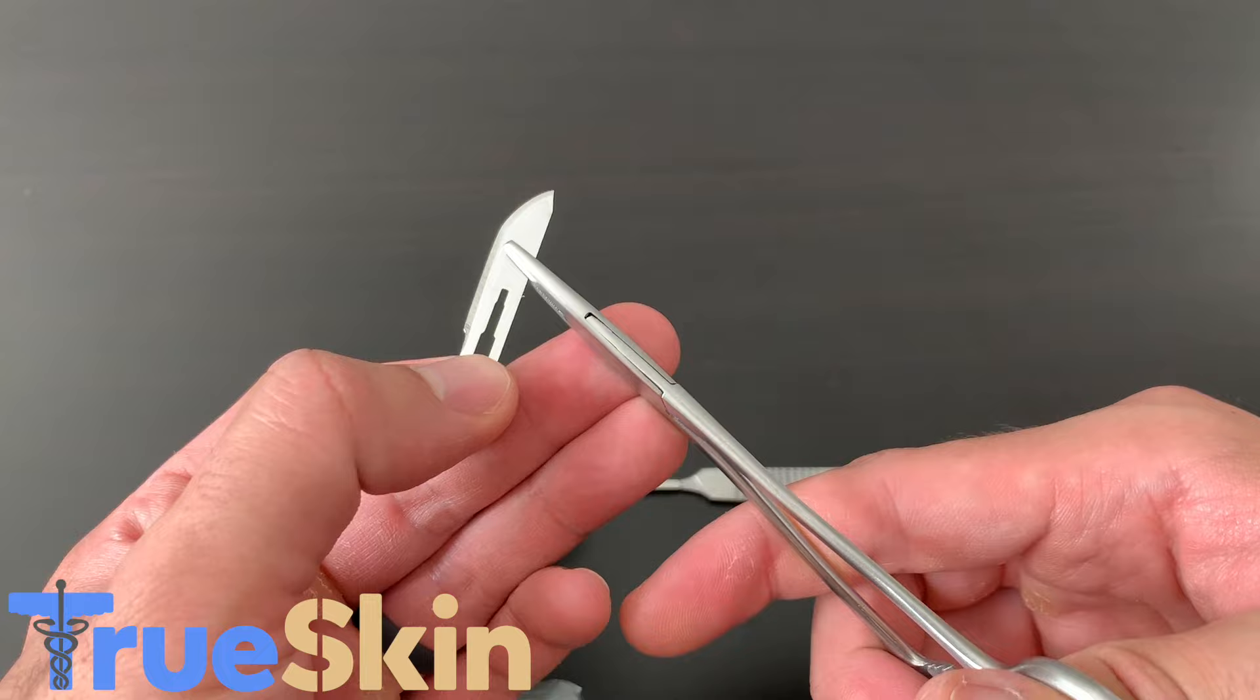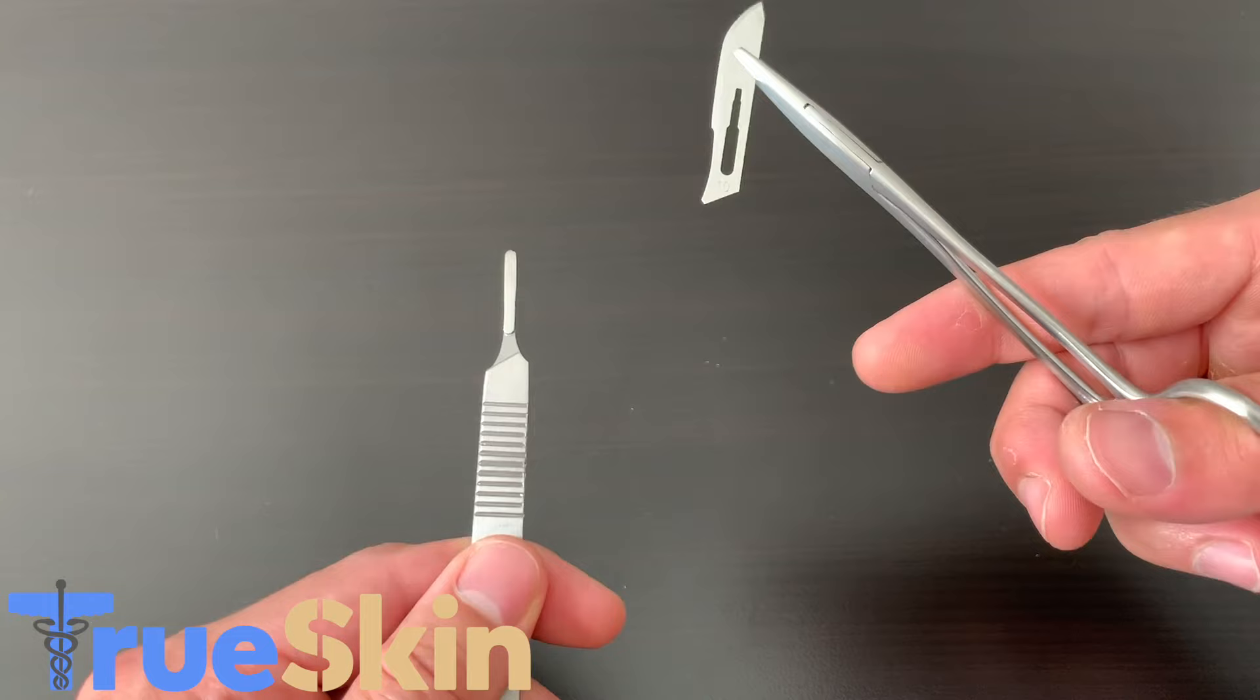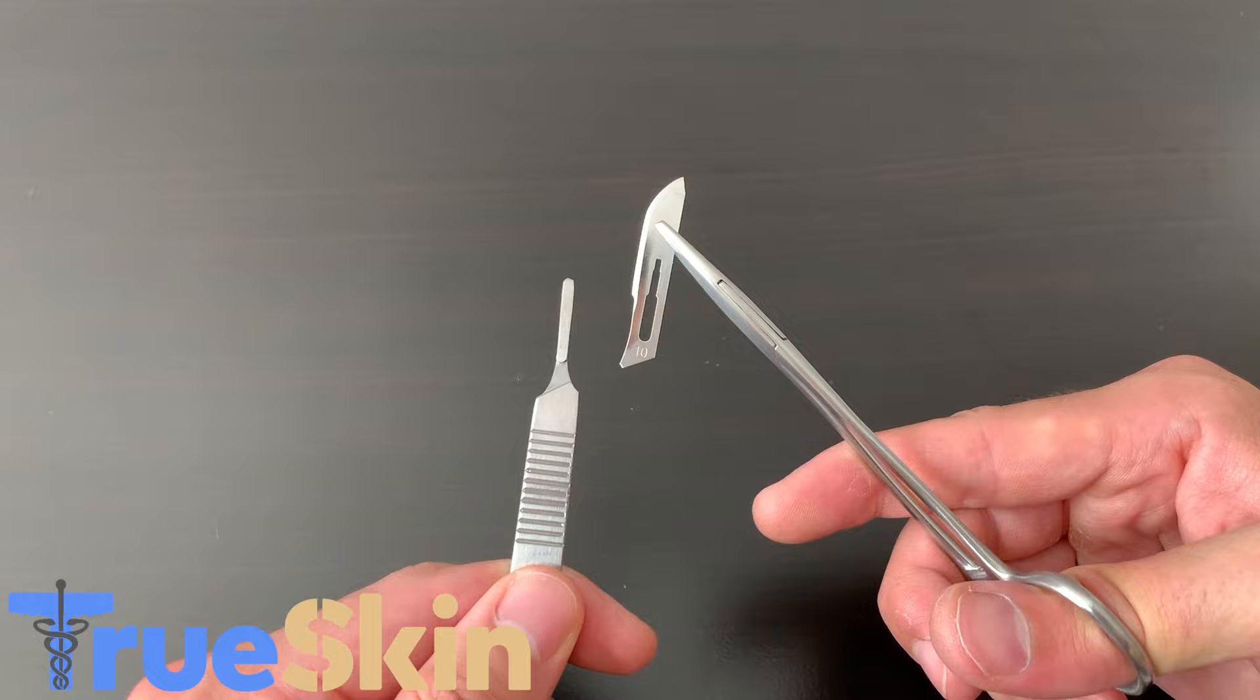Go ahead and click it down three times so it's nice and secure. Then grab your scalpel handle. You'll notice that the handle and the blade both have an angle, and it's important to make sure those are lined up.